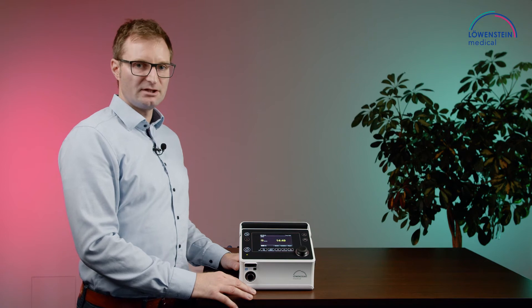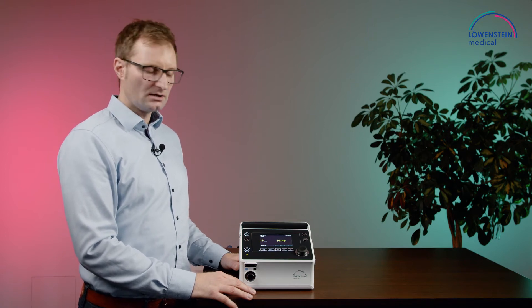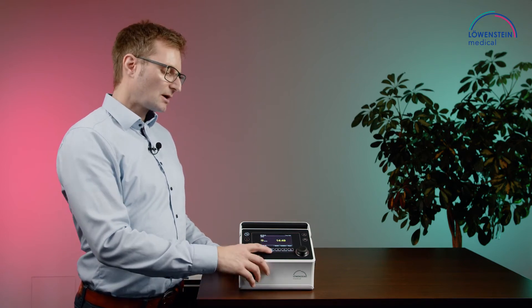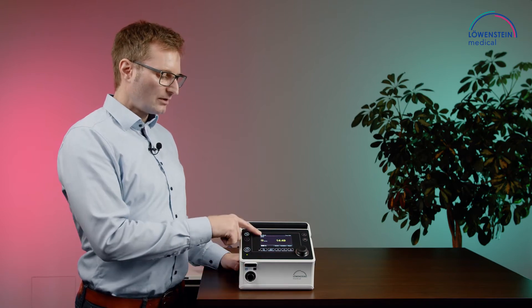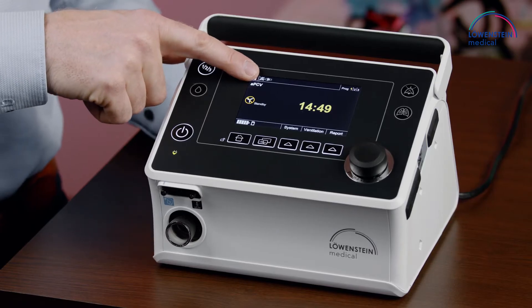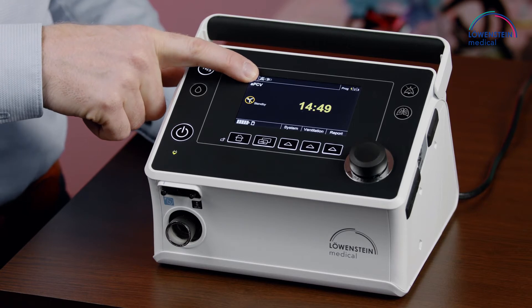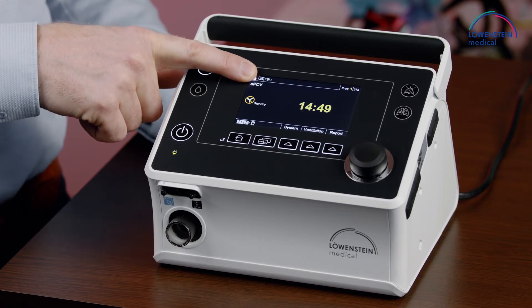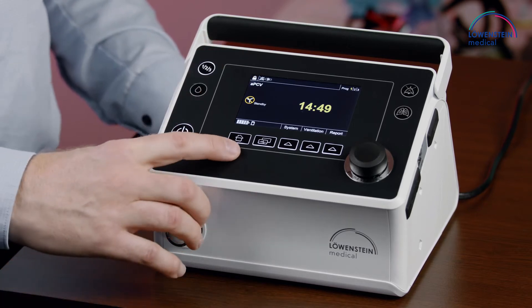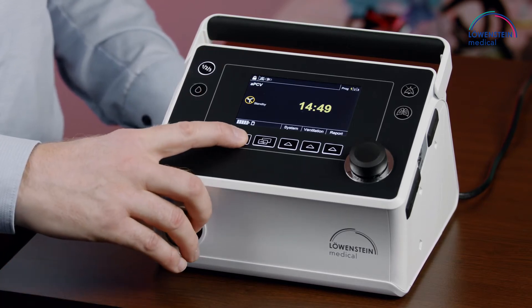To set ventilation modes for the single circuit with a valve, we need to check which system is set in the device. It's currently the leakage system, so we need to change to the valve system. We unlock the device by pushing the home button.